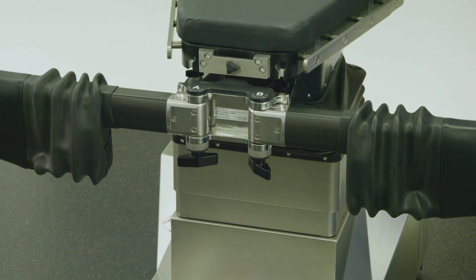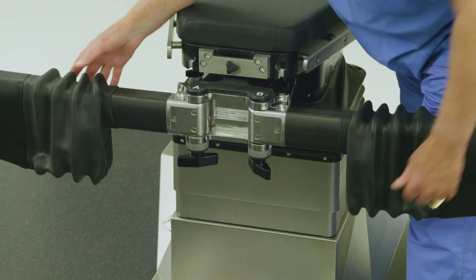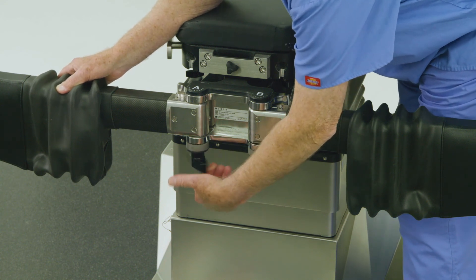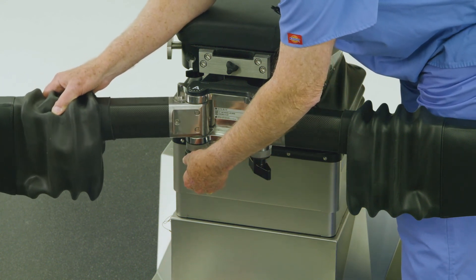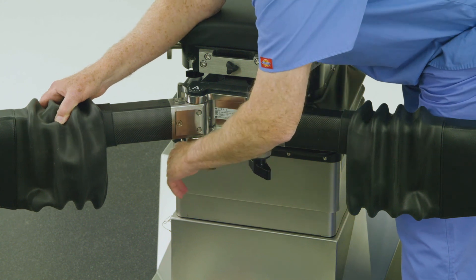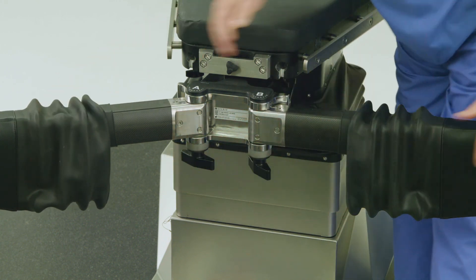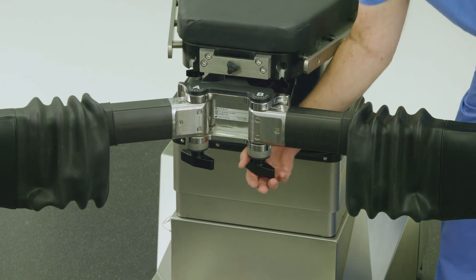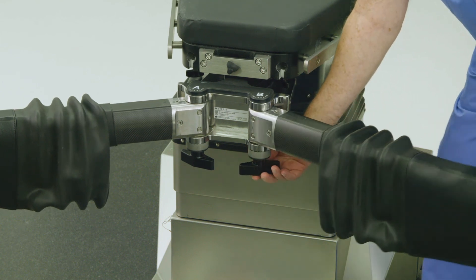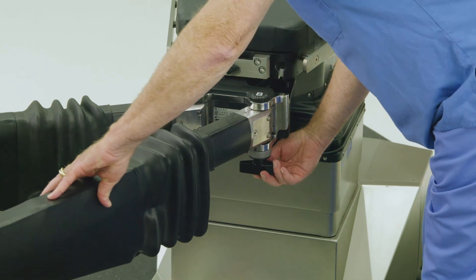To position the abductor spars for an IM nailing in the lateral position for an operative left leg procedure, begin by loosening the knob below the A rosette and set the A joint to position 7, then re-lock the A rosette handle. Next, loosen the knob below the B rosette and set the B joint to position 1, then re-lock the B rosette handle.